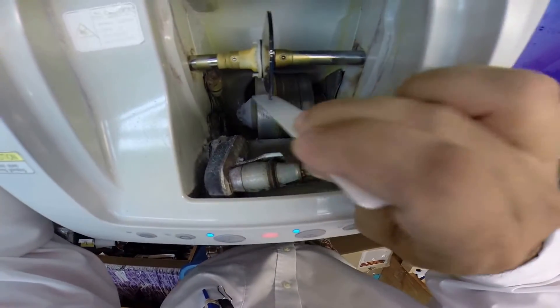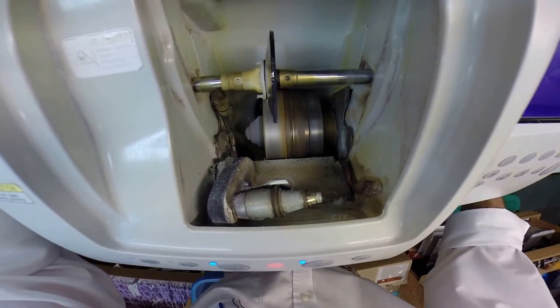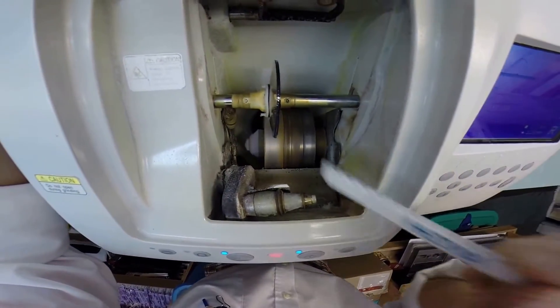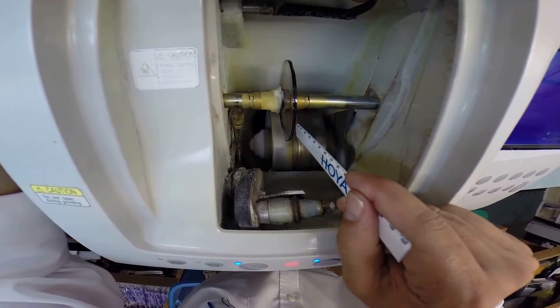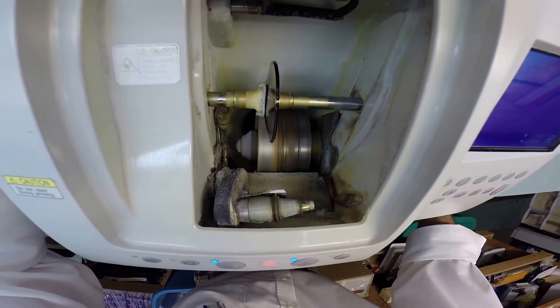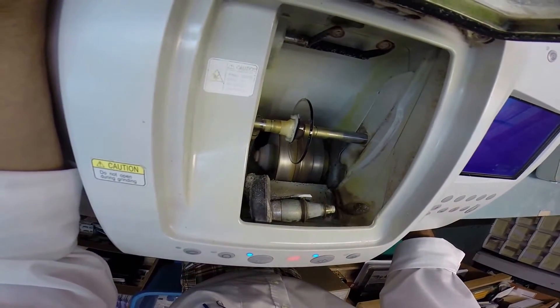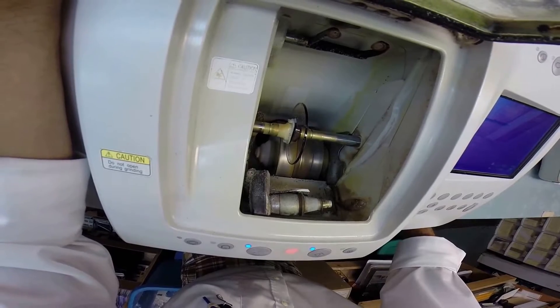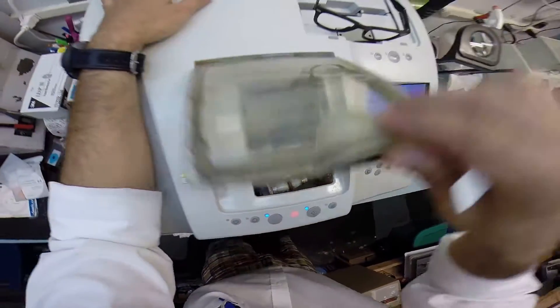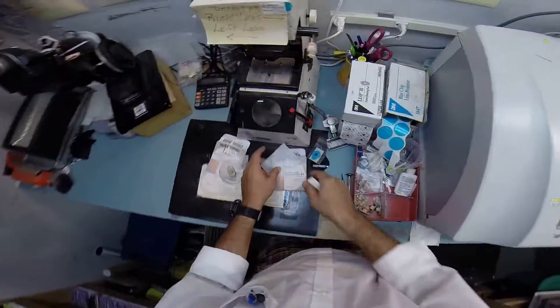The actual cutting wheel is down here on the bottom left - that lighter color wheel that's going to act like a heavy grit sandpaper that's going to grind away your polycarbonate material. This wheel in the center of that little channel, that valley, is what's going to cut the bevel onto the lens so it stays inside the frame. I will have to close the door in a moment, but I just want you to see as your lens touches down on the cutting wheel.